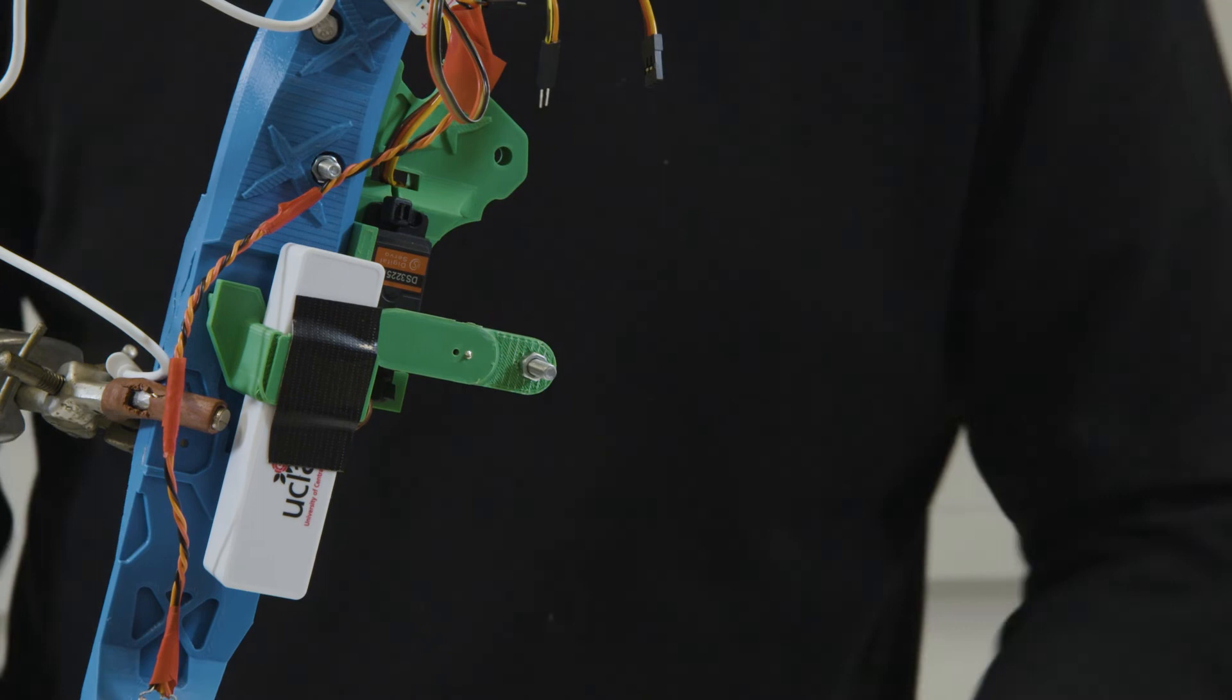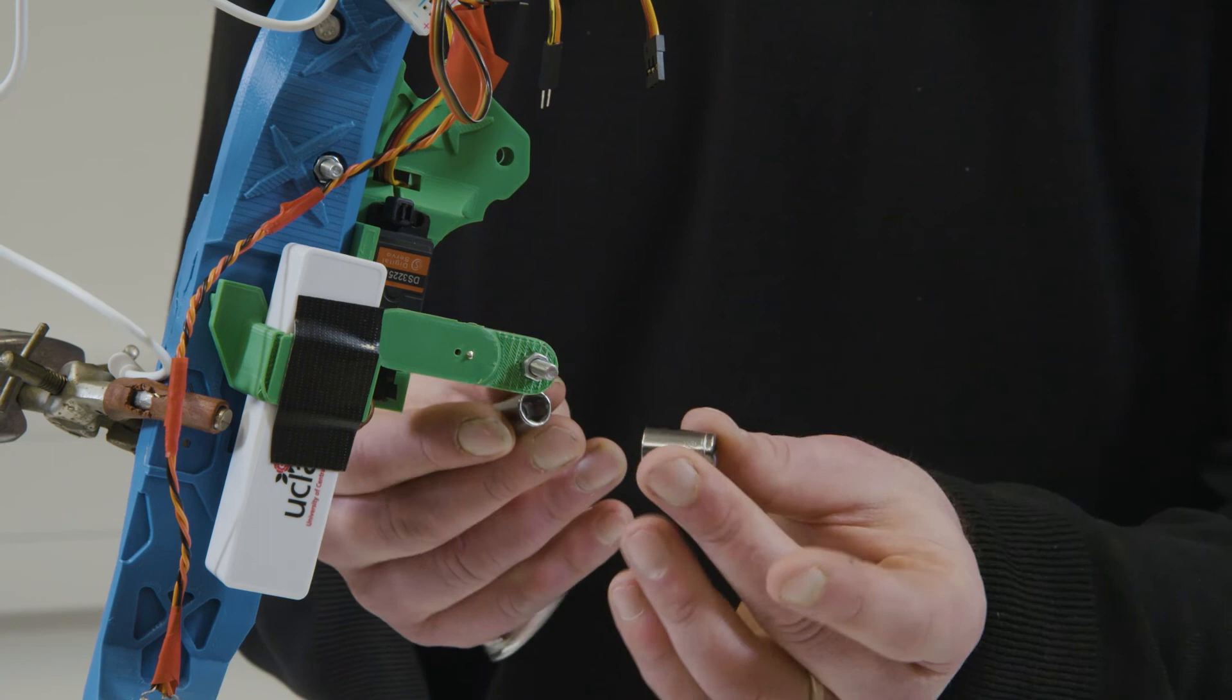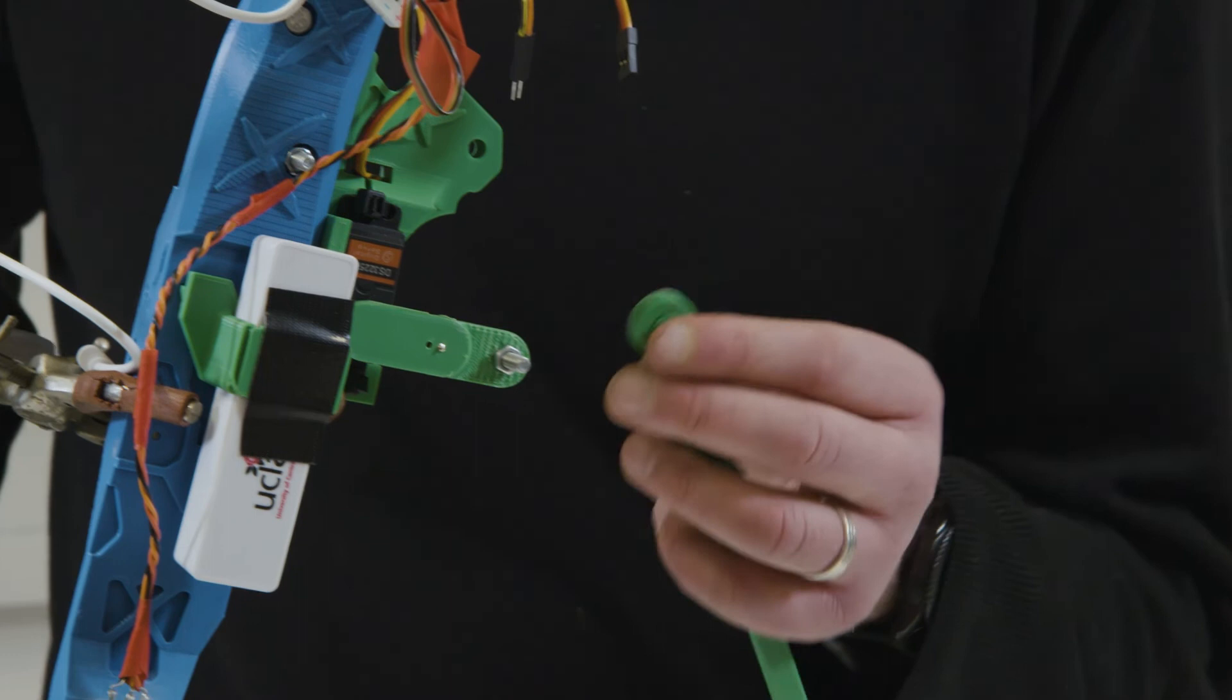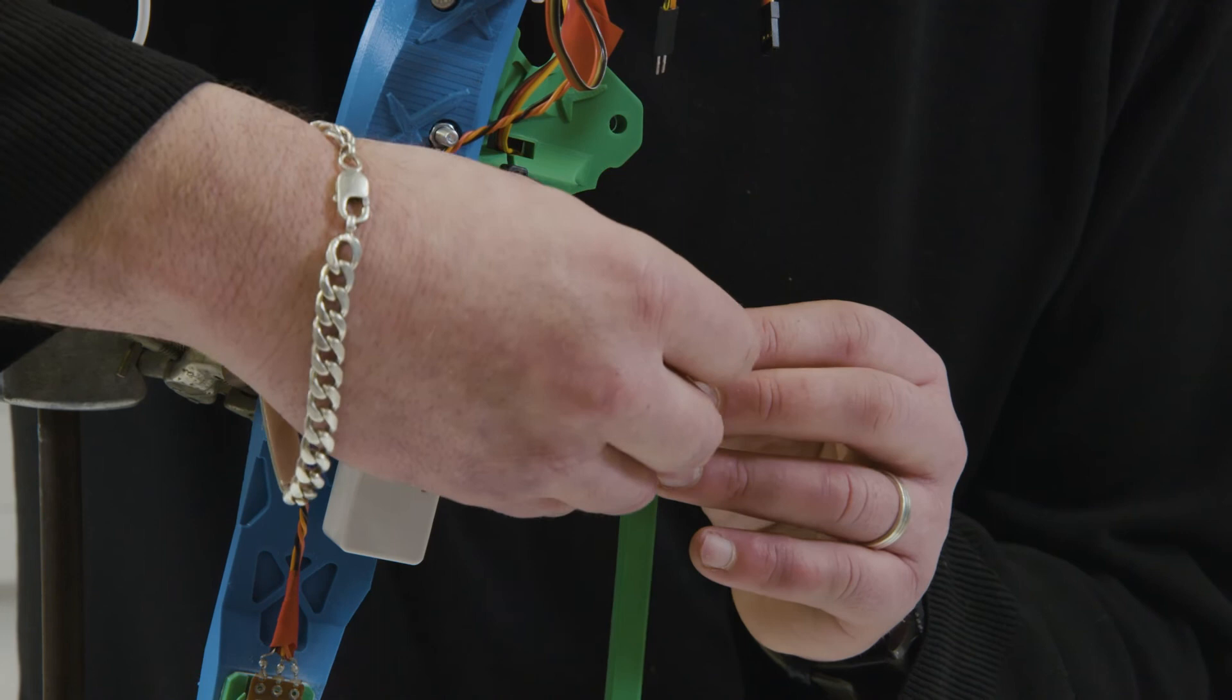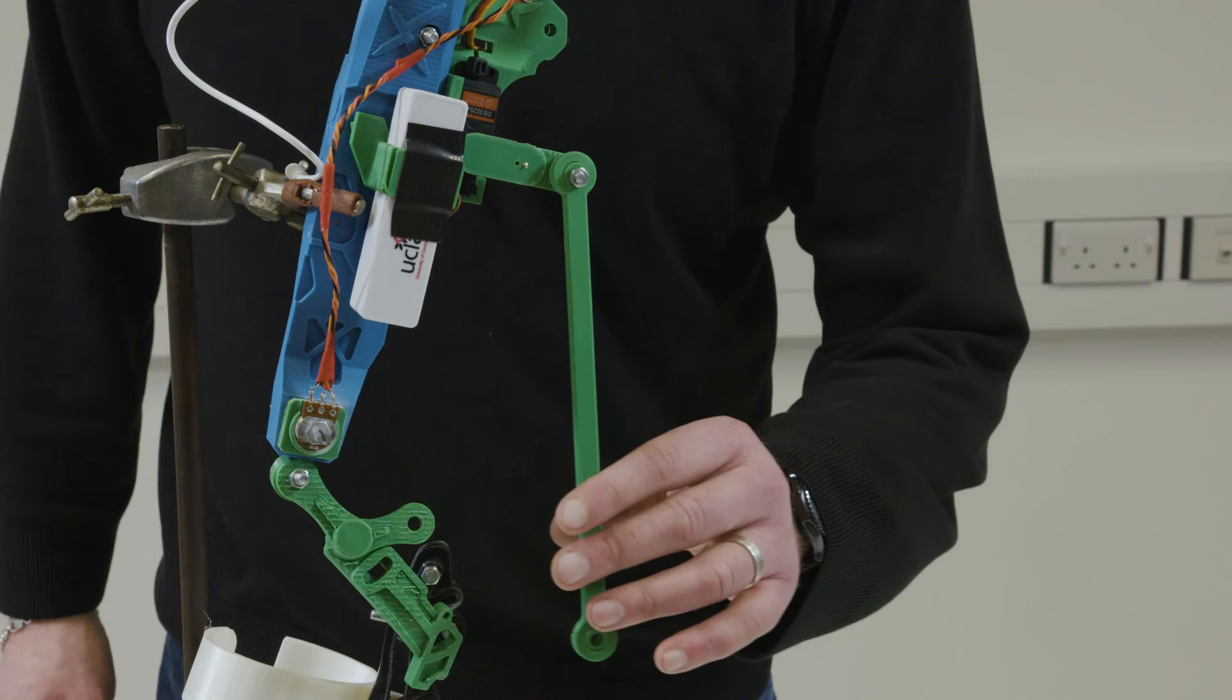Again using my trusty thumb tightening, just bring them together. Finally, rod end over the top. And I am just going to connect up the nut. This should be able to almost freely kind of move. So you should have, you should be able to draw little circles if you will.